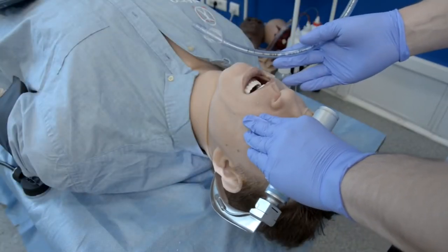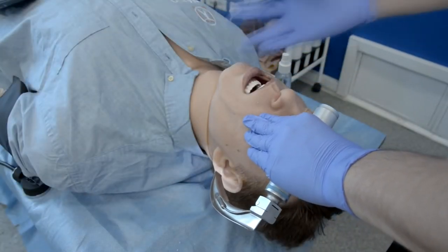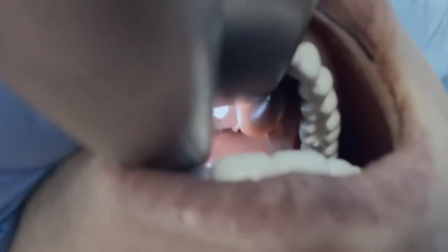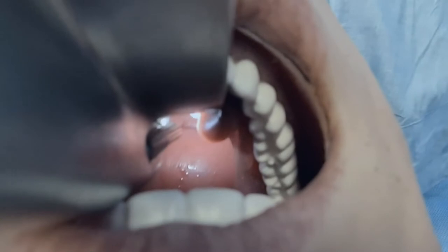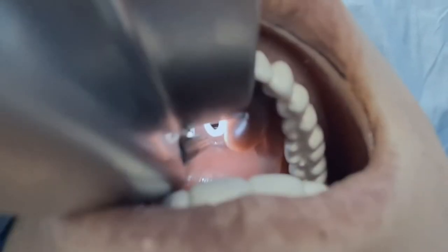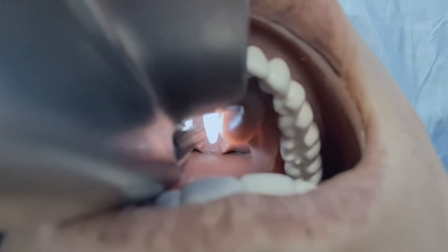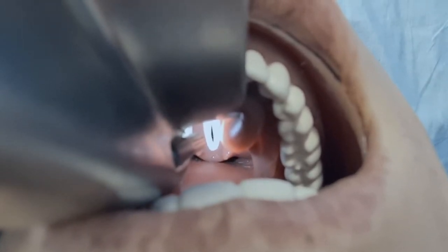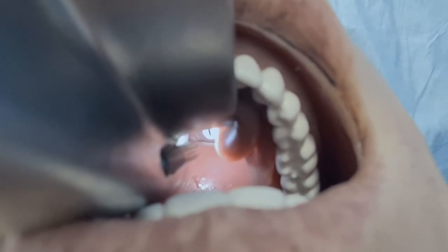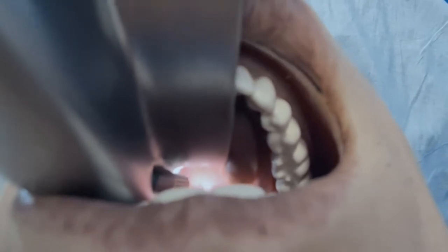Let's have a look at Leonardo's intubation and try all the difficult airway complications available. We have pharyngeal obstruction and laryngospasm. If we also introduce tongue edema, we're going to have a very difficult airway for sure.